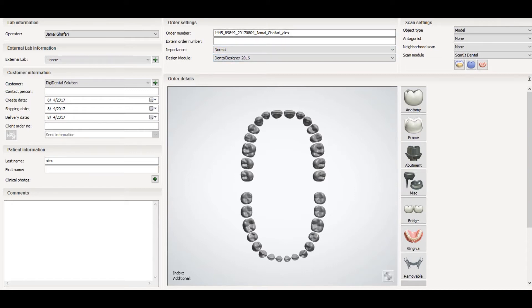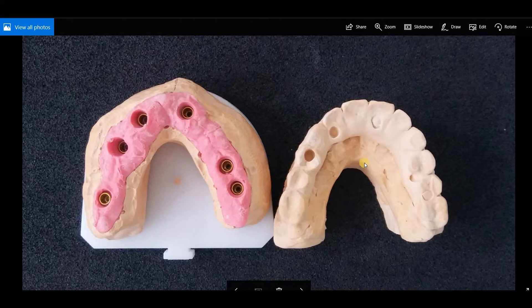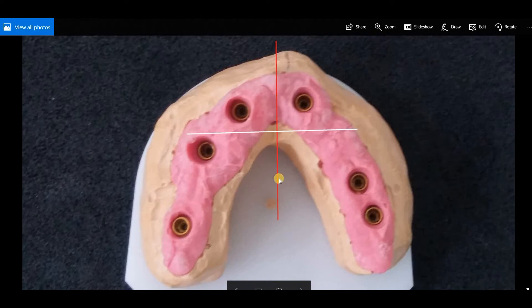Here is our main window. Now, how do we select which tooth is an implant and which is a pontic? If you have the temporary or the initial load impression, you can use that model to define the position of each implant. If you don't have the temporary or the model, you can divide from the center and draw a line passing from canine to canine as a simple reference.